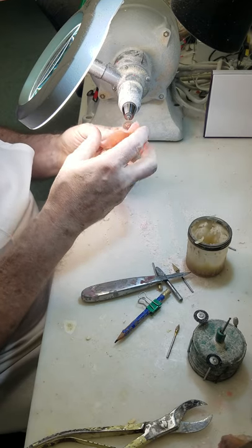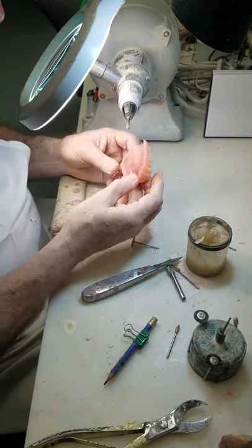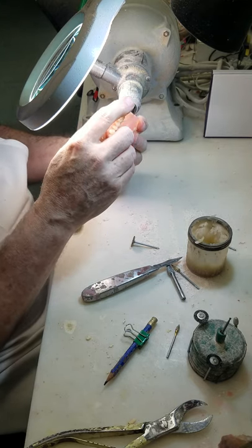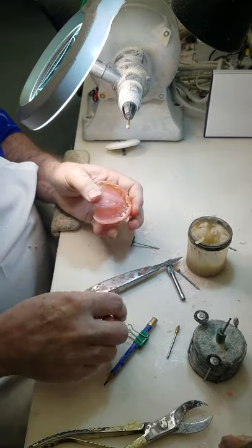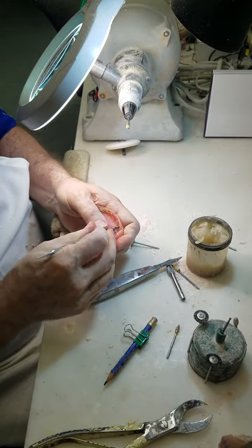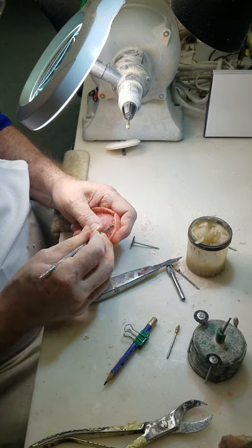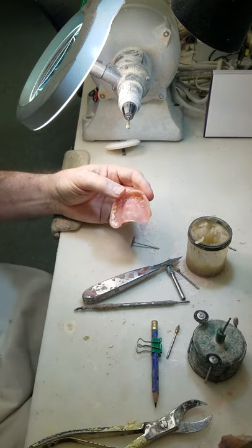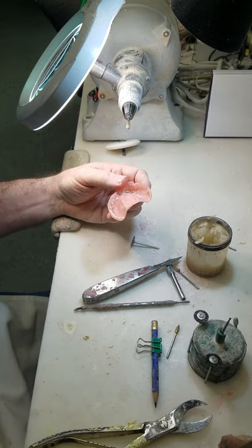On the underside it's a really rough denture — it looks like a recent immediate. Sometimes what causes dentures to come out dirty on the underside is the dentist or whoever poured the model had too much water in their mix, so the surface of the model is a little on the soft side and the material will kind of grab onto it. Anyway, that's the technique. Work on it — you can get it down to 10 minutes. Good luck with it.